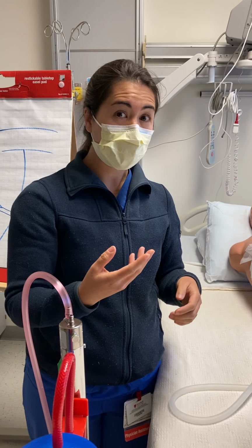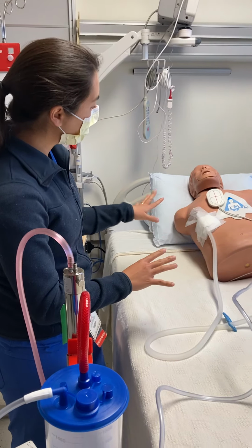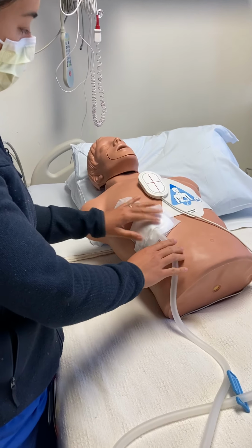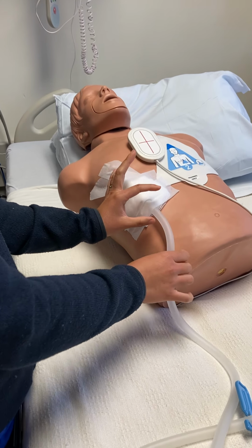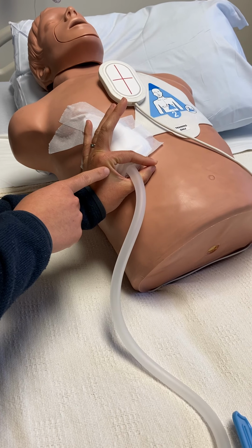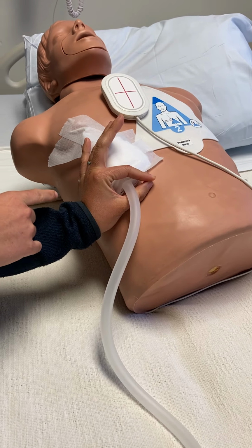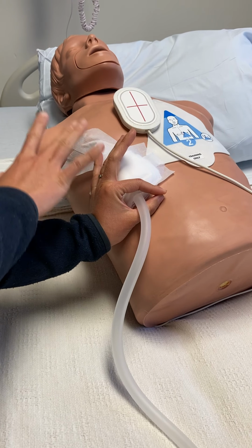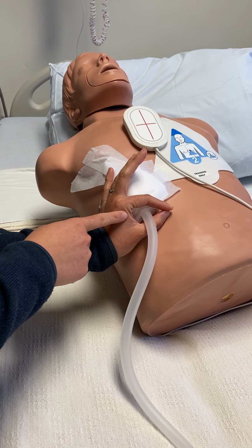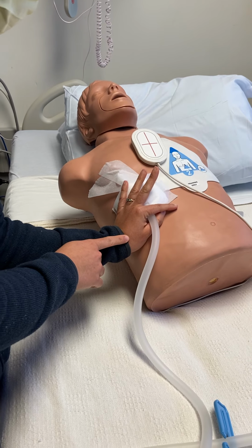If you have something that's continuous, then we worry more about a system issue. So there are different areas that you can assess. You can start off looking at your patient and the chest tube site. If we imagine that this is the incision coming around the tube, if that incision is larger than the tube, it's easy to entrain air and release air from around that site. So you can look for increasing subcutaneous emphysema, look for a continuous air leak. And if this ends up being the problem, then you would let us know and we would do a stitch to kind of close that down.